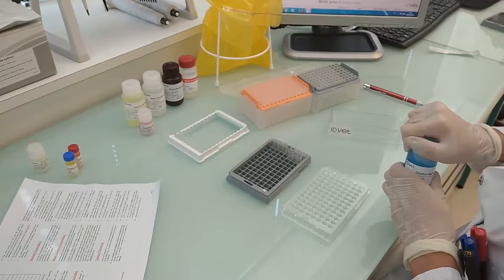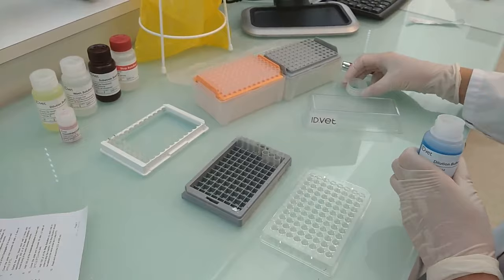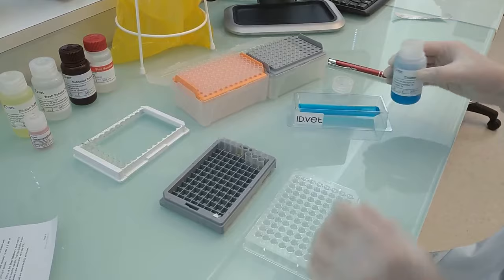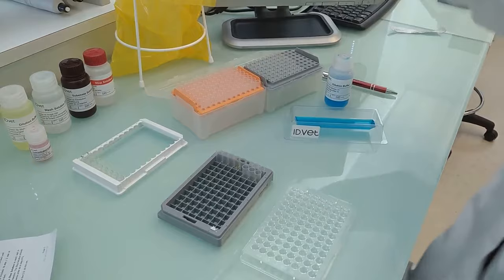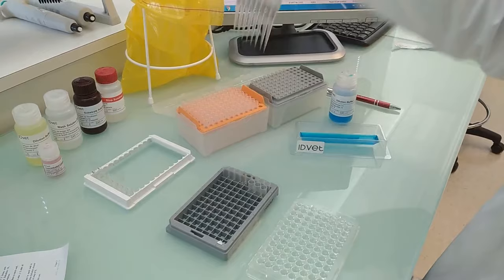Then add 245 microliters of dilution buffer 14 to all wells except to control wells A1, B1, C1, D1, and E1 if necessary. It is recommended to respect the indicated order of deposit to be able to visually control addition of sample to each well.